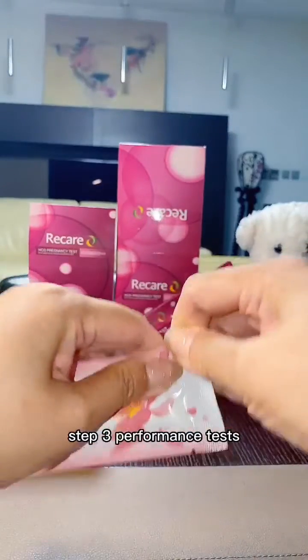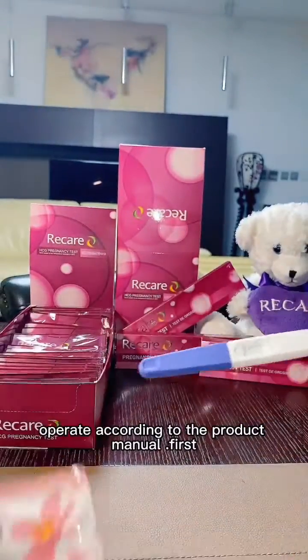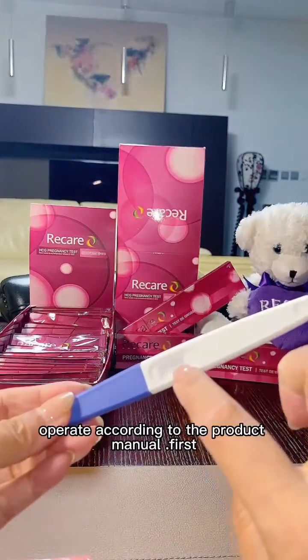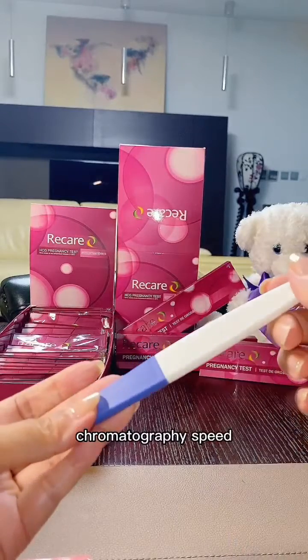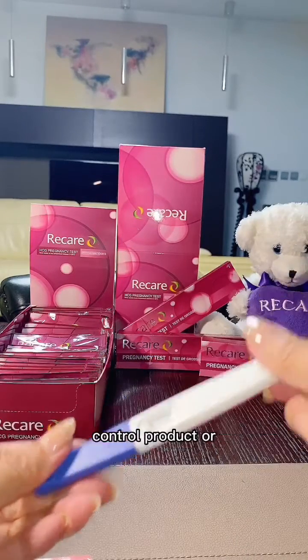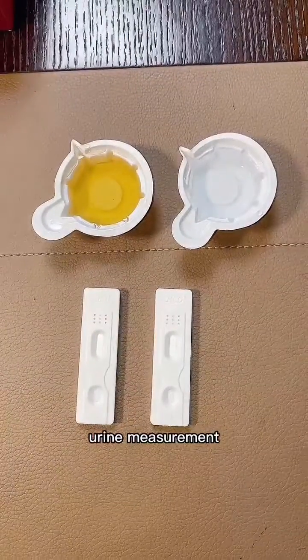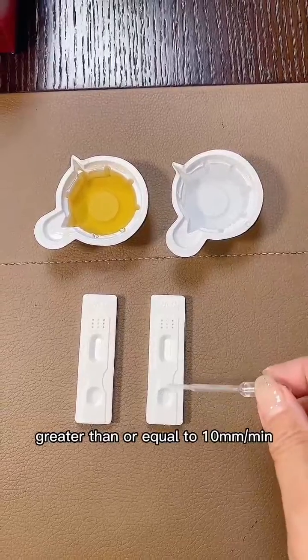Step 3. Performance test. Operate according to the product manual. First, chromatography speed. It can be measured at the same time as the quality control product or urine measurement, and should be greater than or equal to 10 mm per minute.